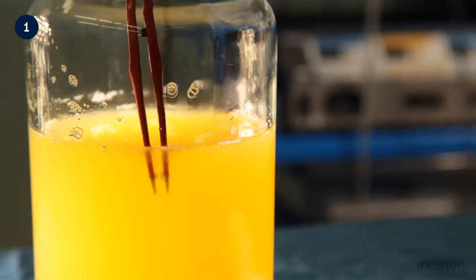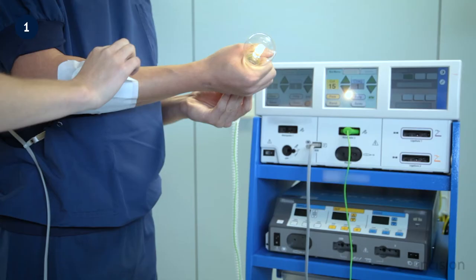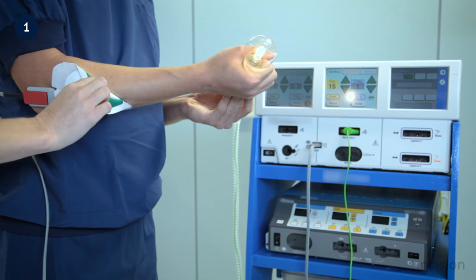When electrosurgery is used in laparoscopy, specific and unique aspects must be taken into consideration. In this course, generally relevant considerations during laparoscopic electrosurgery will be discussed. The information in this course builds on the courses The Basics of Electrosurgery and Clinical Effects of Electrosurgery.